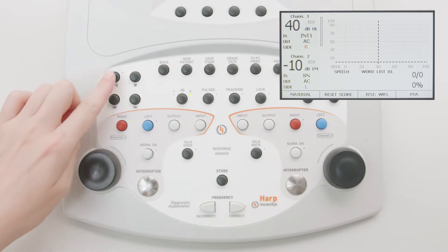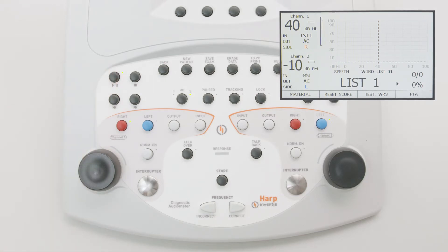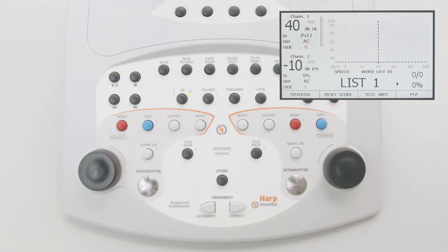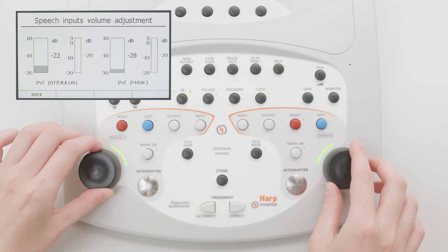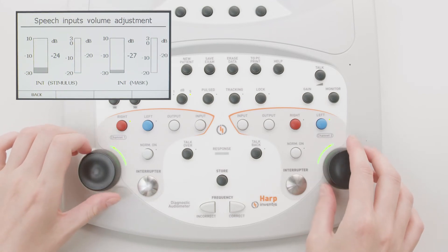In the case of internally stored material, playback can be started by pressing the play/pause button in the upper left corner of the keyboard. Before starting a speech audiometry test, the gain level on the selected input must be adjusted to ensure that the recorded speech material — or the operator's voice in the case of a live speech test — is played back at the correct volume. Press the gain key and make the necessary adjustment using the two knobs according to the selected speech input. Ideally, the VU meter will reach the zero value.